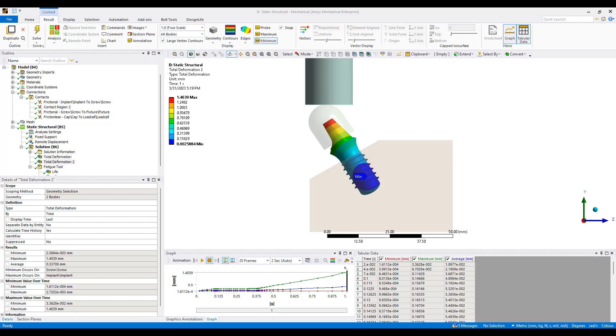This is very typical of many medical device companies. These companies use ANSYS tools to simulate various types of ASTM, ISO or ASME testing methods to make sure that their biomedical implants are durable. The key benefit ANSYS provides here is the ability to model things like nonlinear contacts which allows us to model accurate fixture interaction as well as component to component interaction.